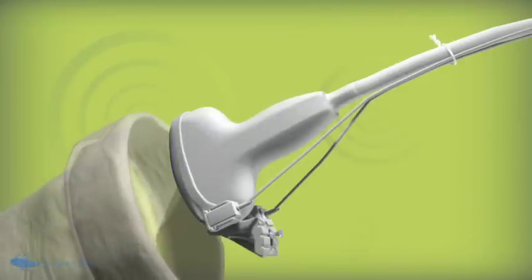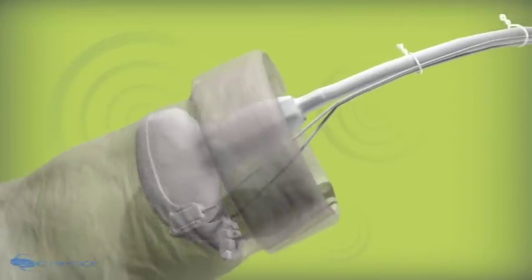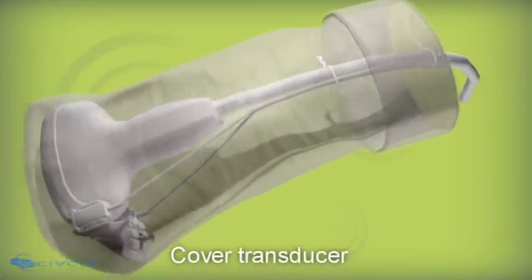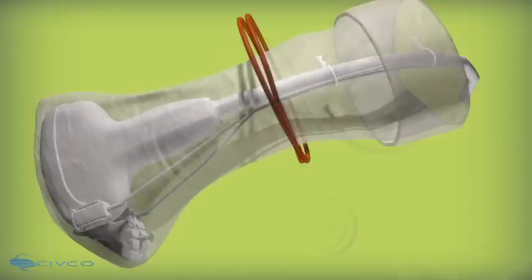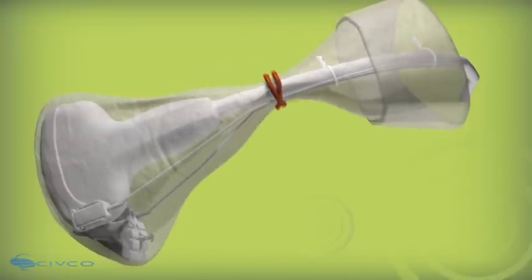The use of sterile covers reduces infection rates and cross-contamination. Civco's telescopically folded CivFlex covers help protect your patient and staff, as well as expands the sterile field by covering the transducer and cords with a sterile latex-free cover.